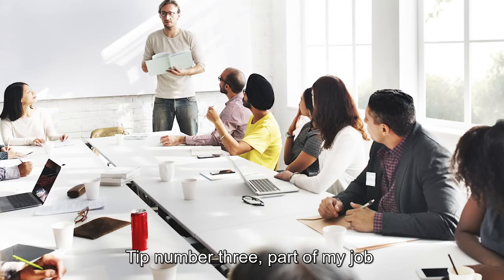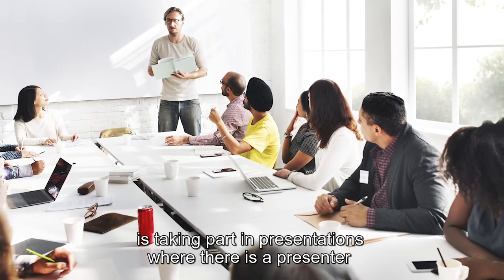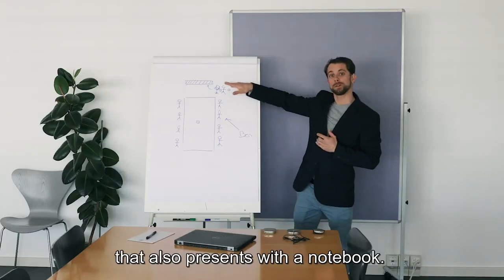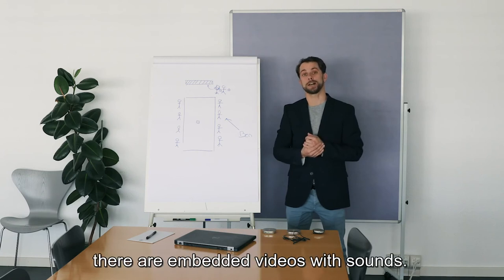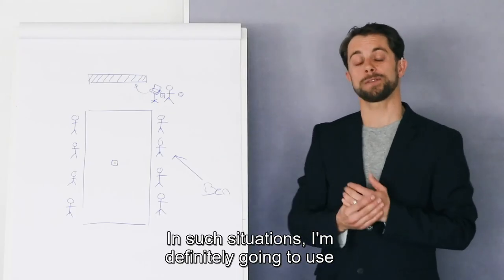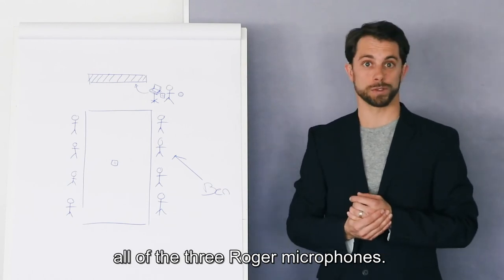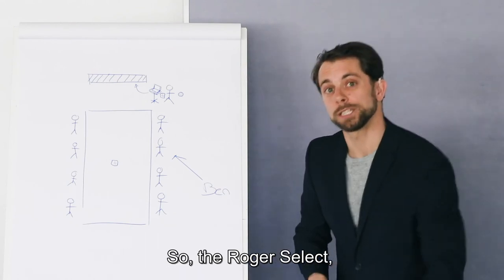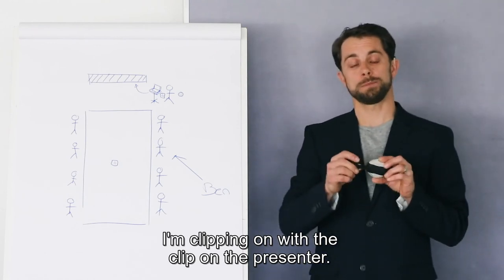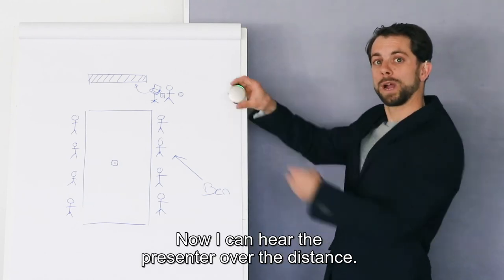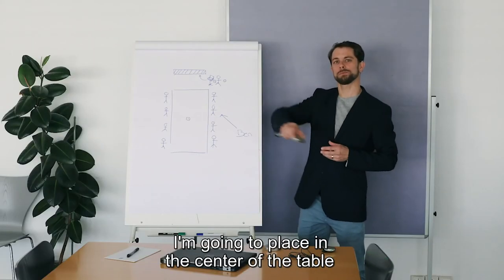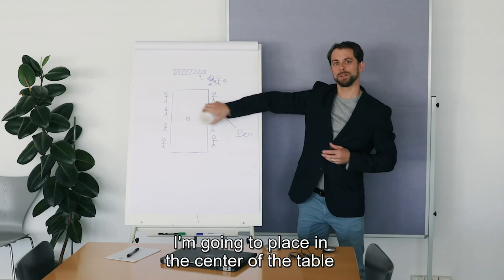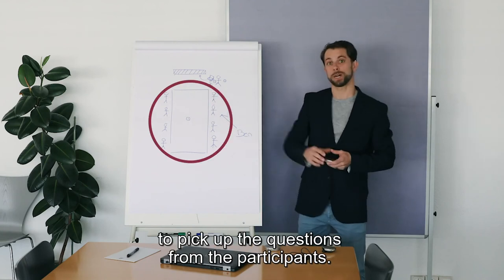Tip number three: Part of my job is taking part in presentations where there is a presenter that also presents via notebook. Often in these presentations, there are embedded videos with sounds. In such situations, I'm definitely going to use all three Roger microphones. The Roger Select, I'm clipping on with the clip to the presenter. Now I can hear the presenter over the distance. Then one Roger Table Mic, I'm going to place in the center of the table to pick up the questions from the participants.